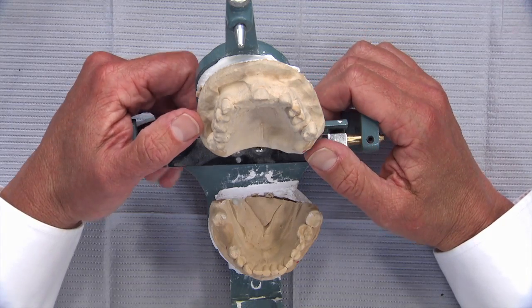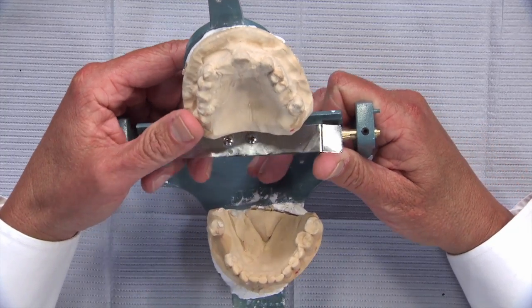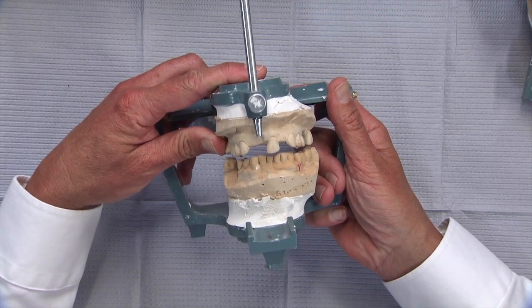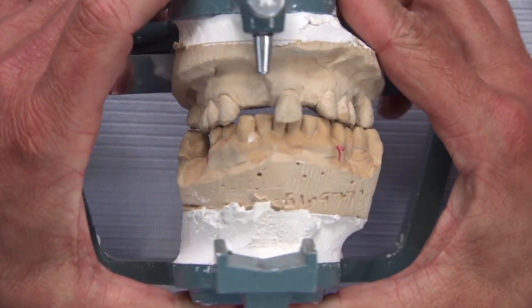I was walking through the partial denture department the other day and ran into the manager Jerry Lord. I asked him to show me some of the most common problems his department sees, and he reached over, grabbed this case, and said this is one we see all the time. He wanted to show me a solution he thinks is great — and I have to agree with him.